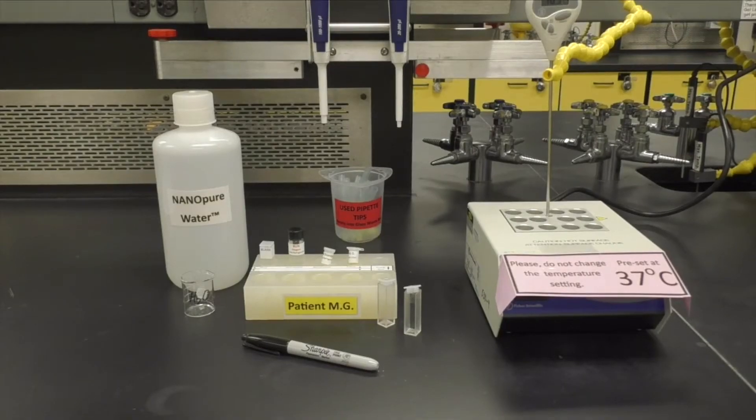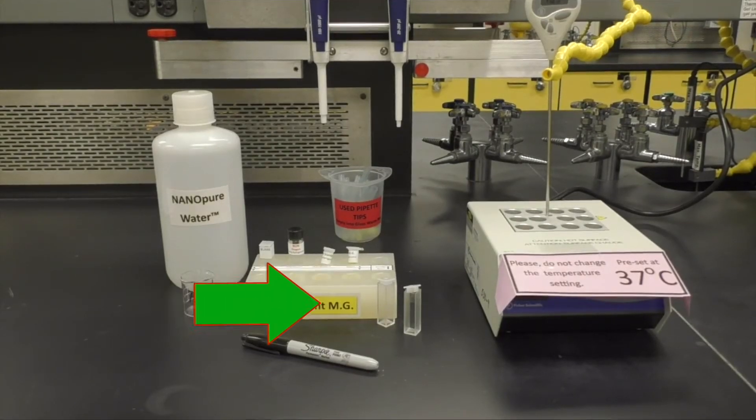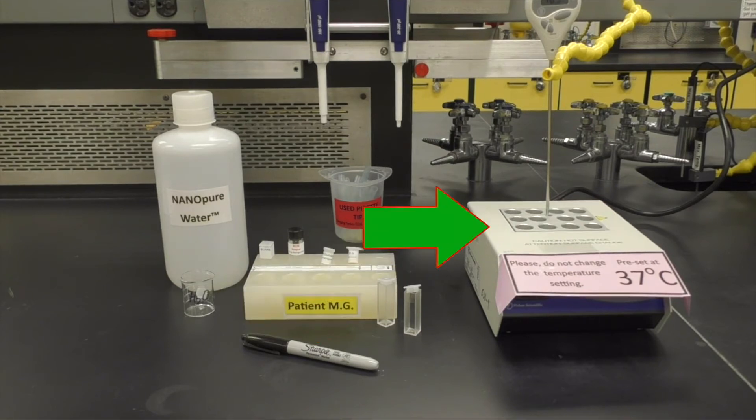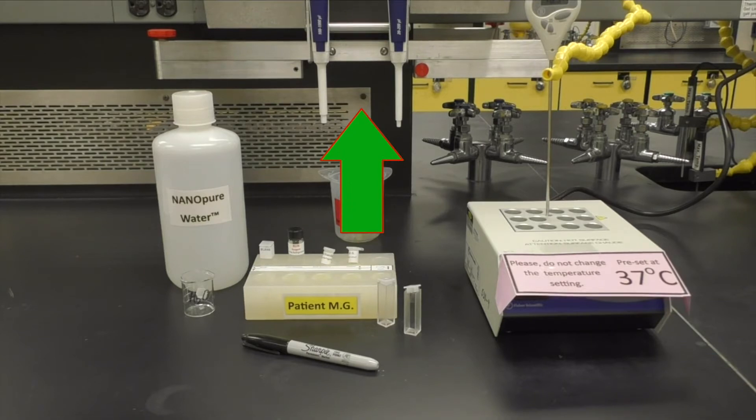To perform the experiment, you will need your patient block, two new cuvettes and caps, a dry bath set to 37 degrees centigrade, your micropipettes and tips, and some nanopure water in a small beaker.